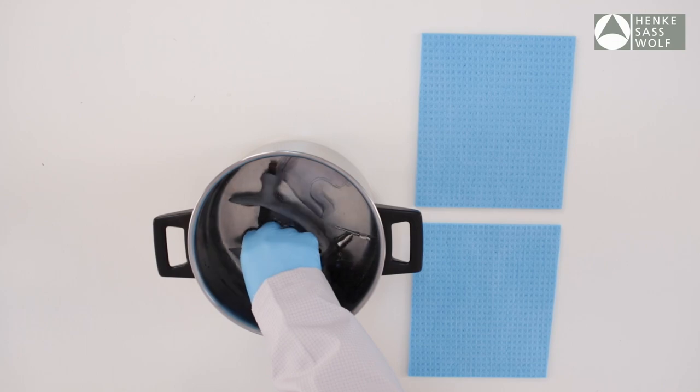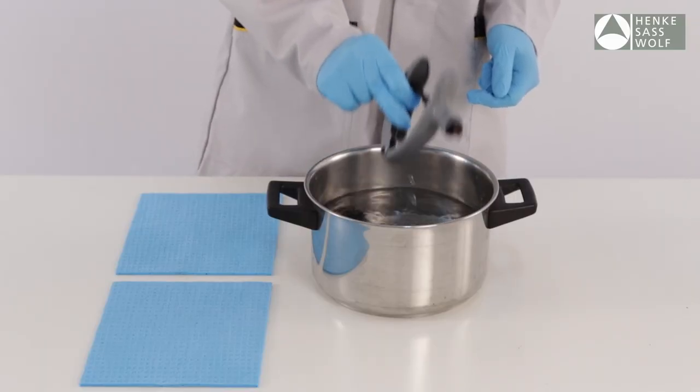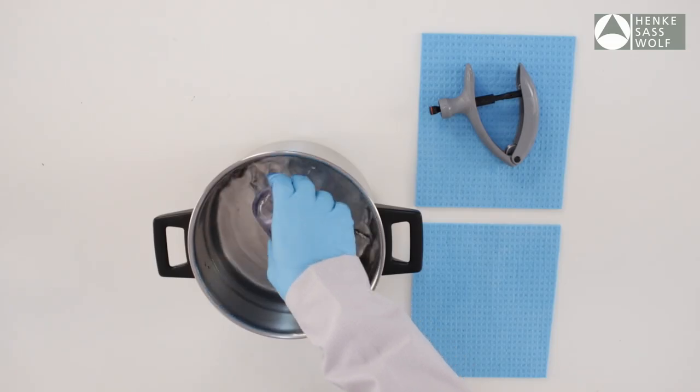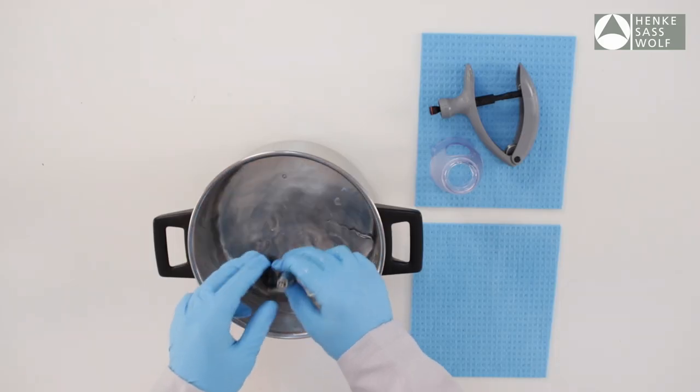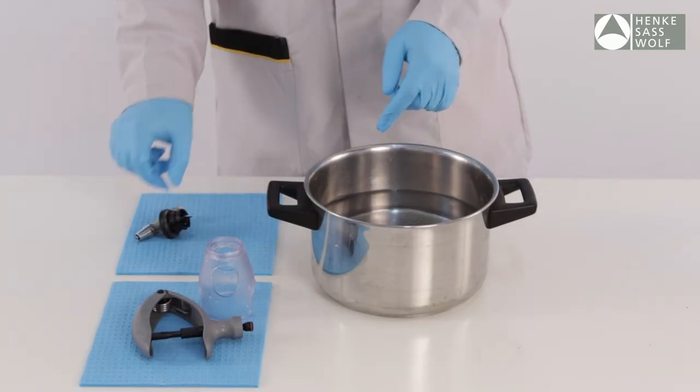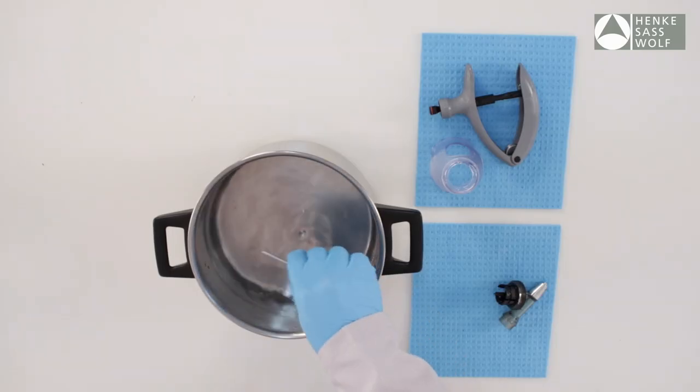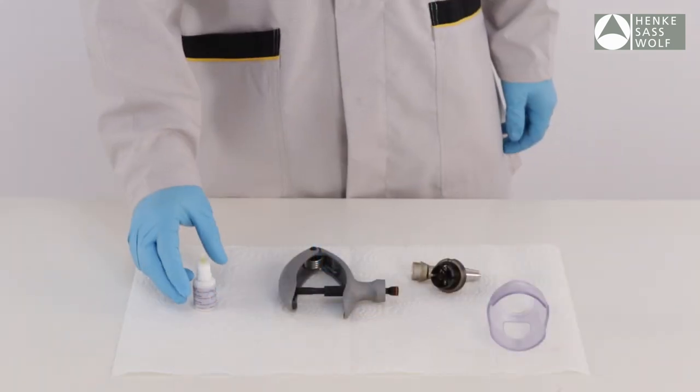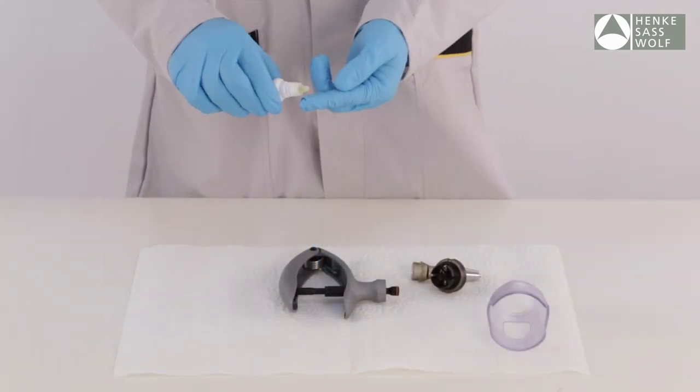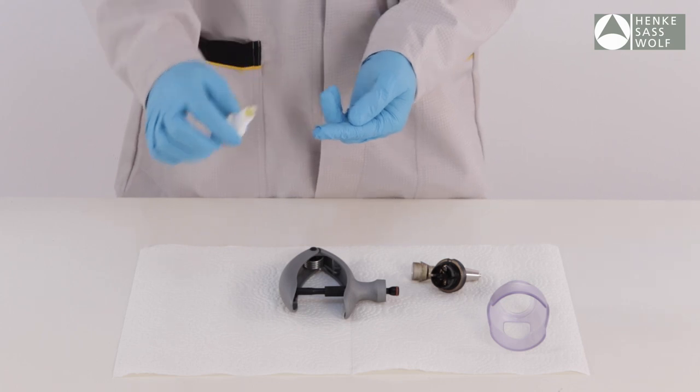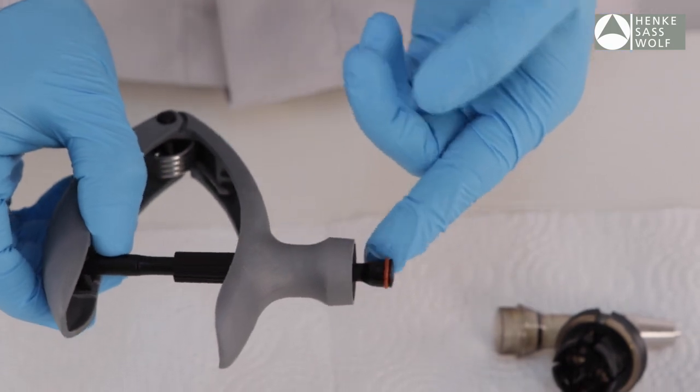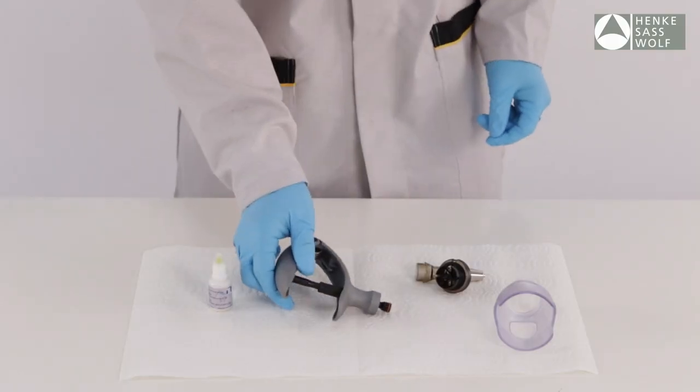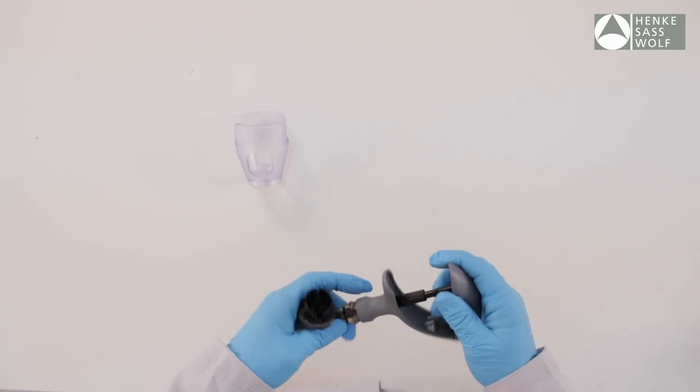Remove the Ecomatic from container and let it dry. Lubricate the O-ring with 100% pure oil, cold squeezed or equivalent vegetable oil. Reassemble the syringe.